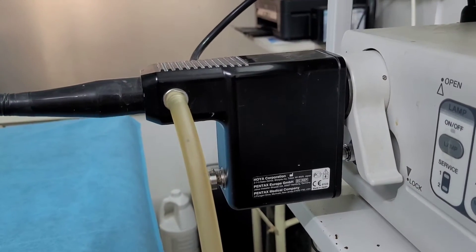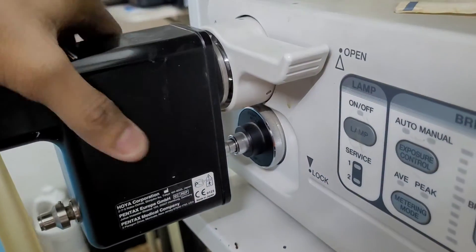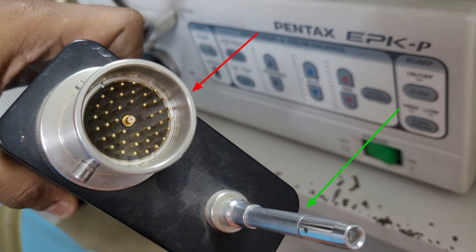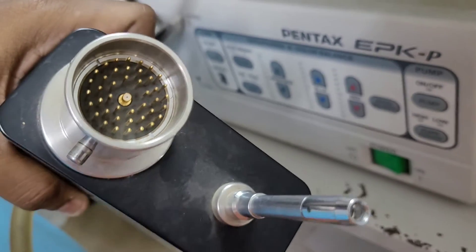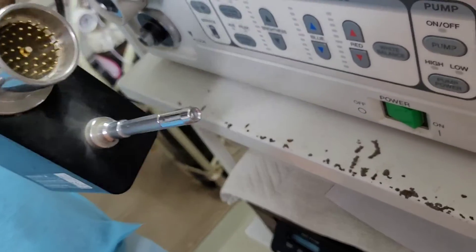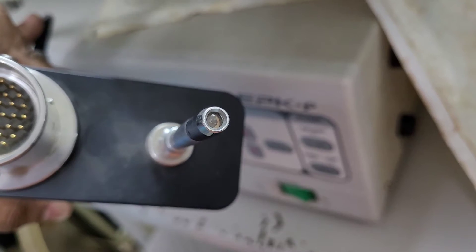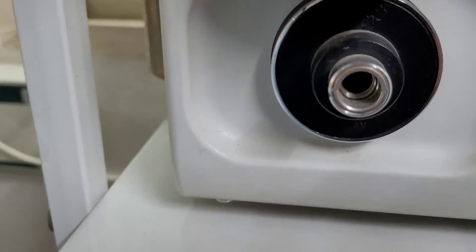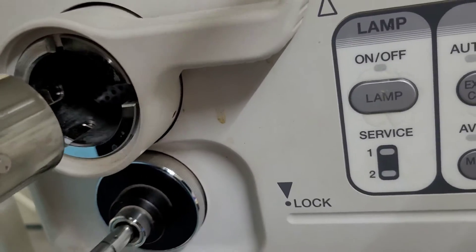Starting with the umbilical cord — you unlock it and remove it. You can see the video connector and also a light source connector, which are used in every endoscopy unit. To connect it back to the machine, you put it in the same way and lock it from the right side.